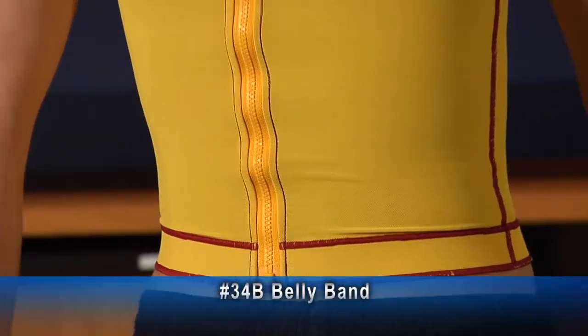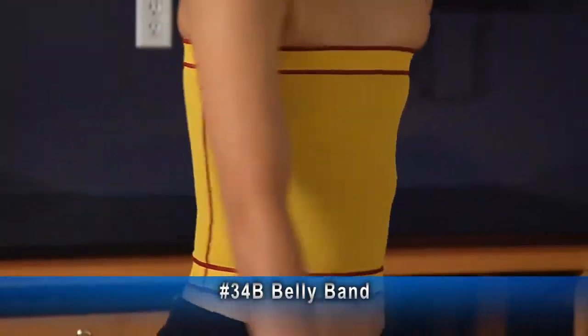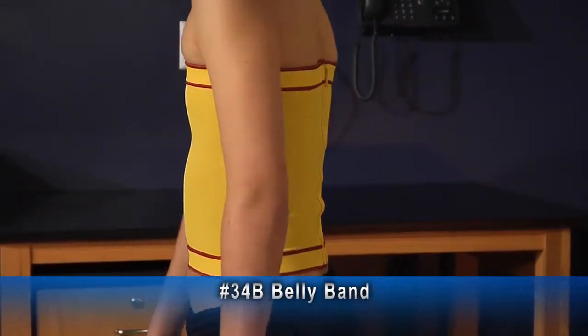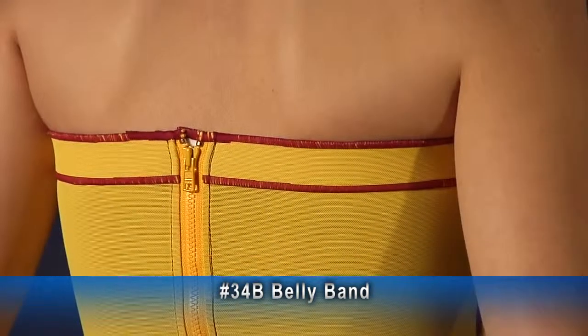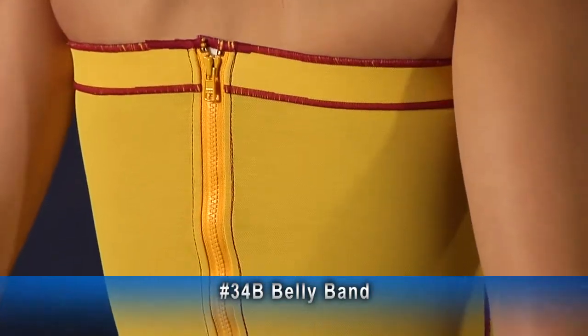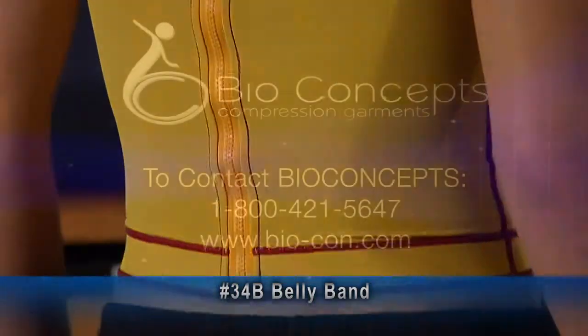Number 34B is a belly band. It has no need to go higher than the axilla or lower than the lower waist. Belly bands do not come with zippers — the zipper shown here is optional.